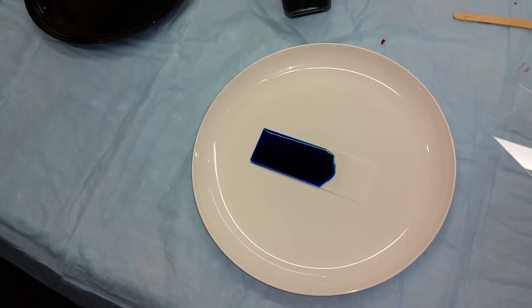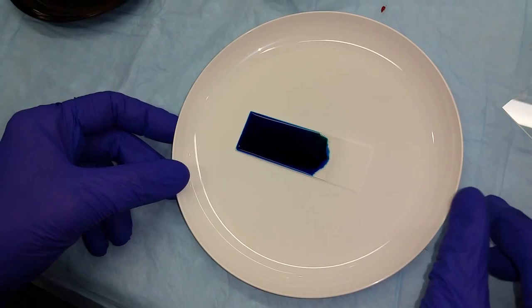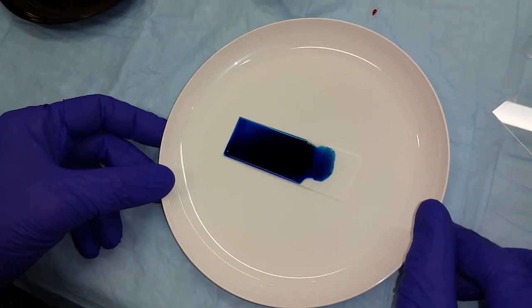Allow the smear to stain for approximately 10 minutes. The common error is not to put enough stain on the slide. You want to make sure that the slide is completely covered.